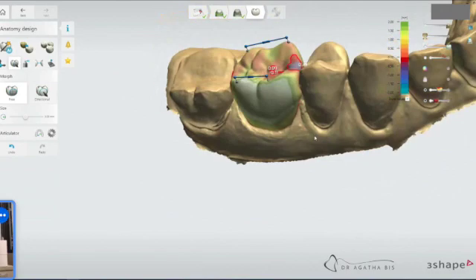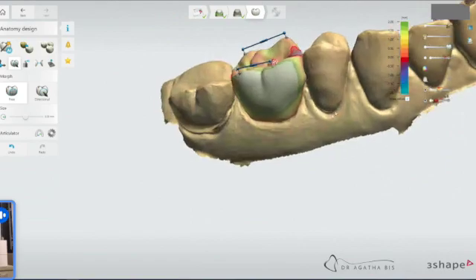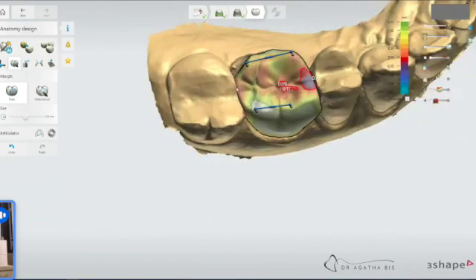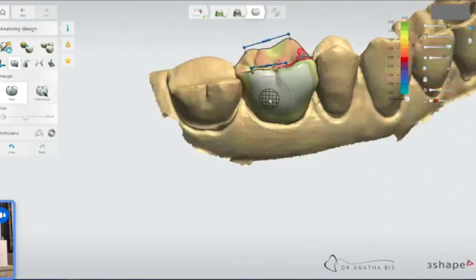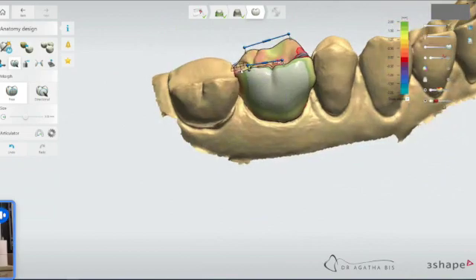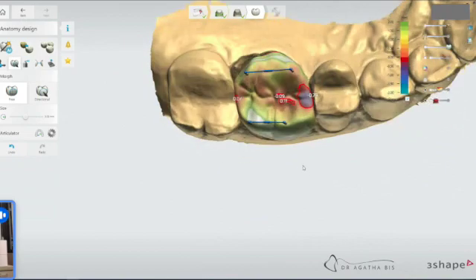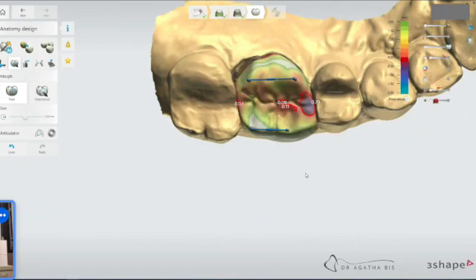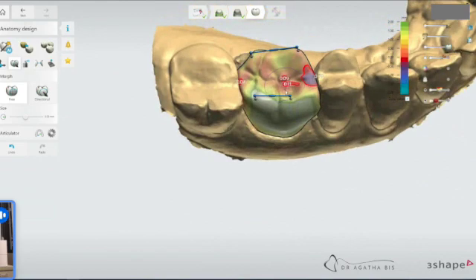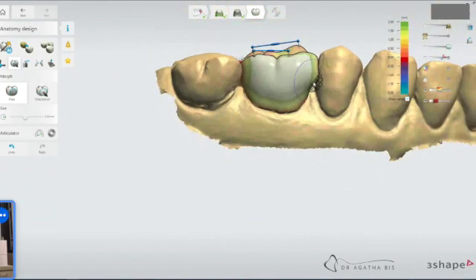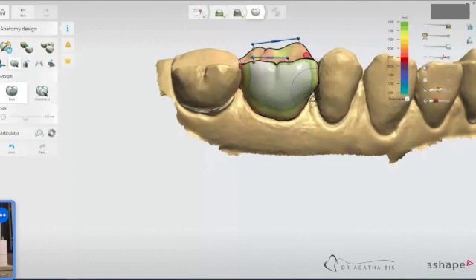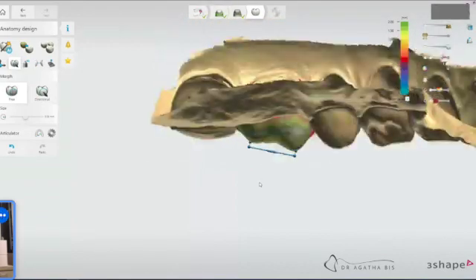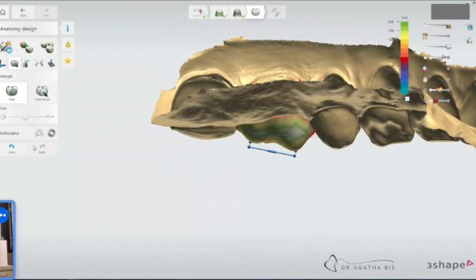That's a really neat tool because it allows me to move the actual character of the crown that's already been designed and I don't have to redraw. There's like a little thin area here. We'll deal with that after. But what I don't like is the pointy cusp, considering she's got a lot of flattened cusps on the other tooth. So let's just take this through the articulator function and see what it does.